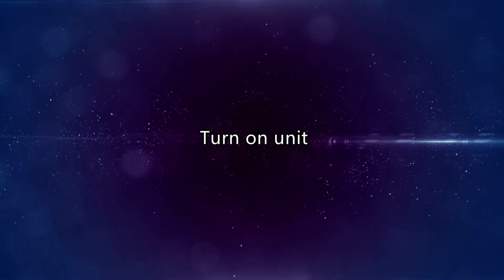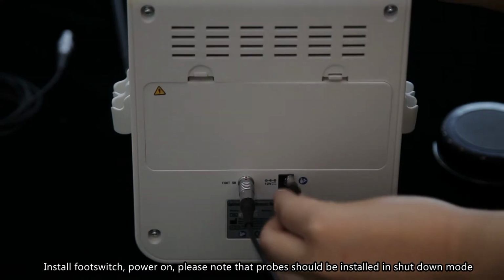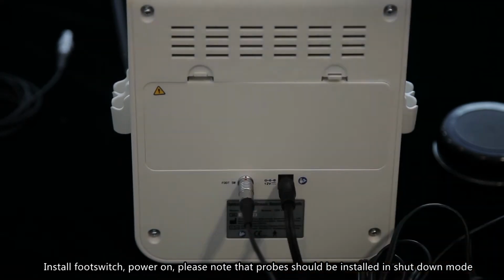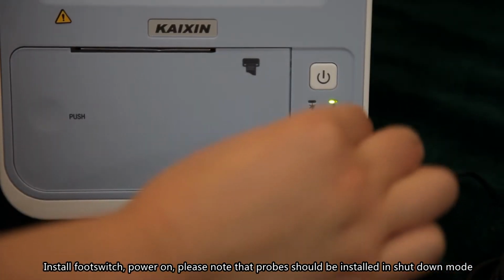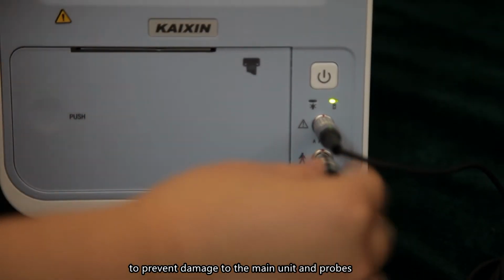Turn on unit. Install foot switch. Power on. Please note that probes should be installed in shutdown mode to prevent damage to the main unit and to probes.